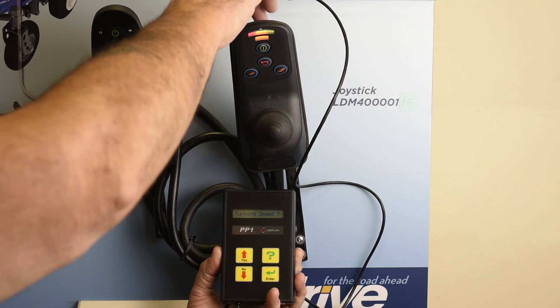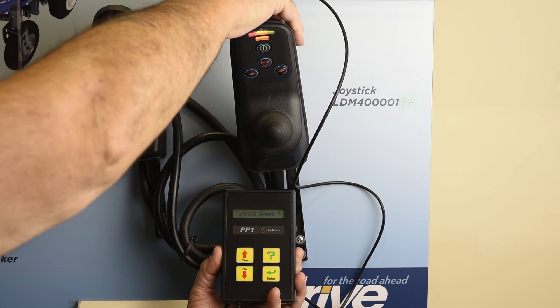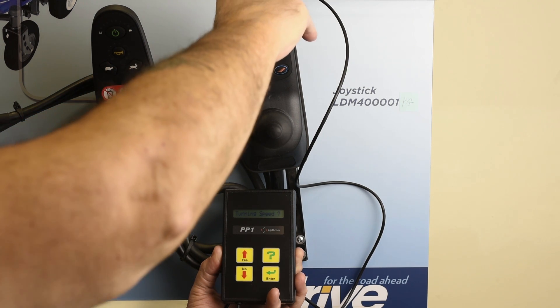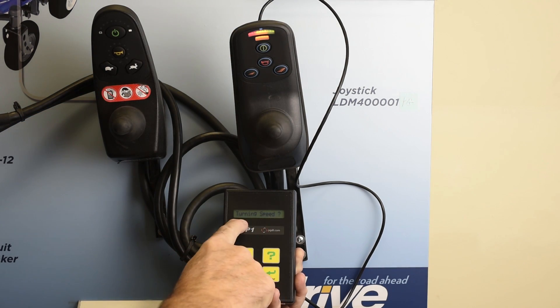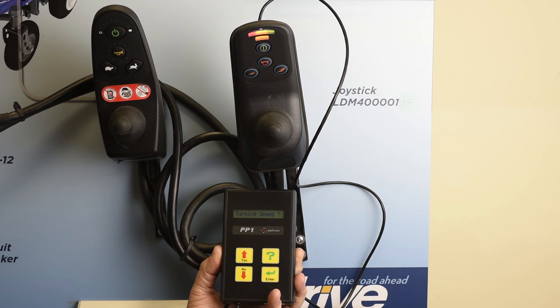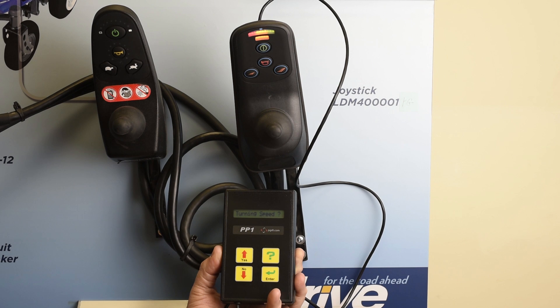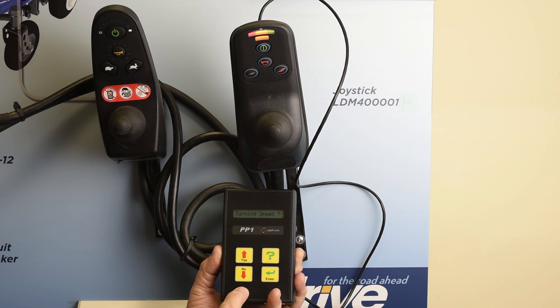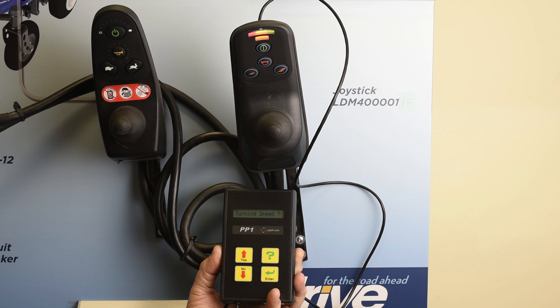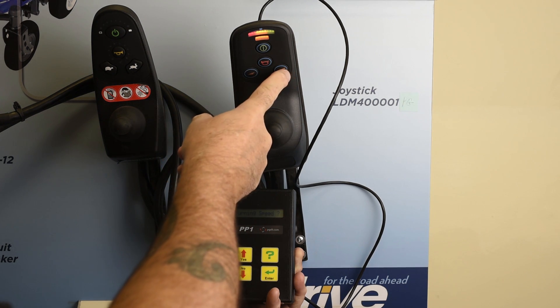On this configuration, we can plug the programmer into the charging port on the front of the joystick. When we turn on the joystick, the programmer will also turn on — you can see here that it's reading turning speed. Using the yes and no arrows, we can scroll through the functions until we arrive at the function we need to adjust. There's also an adjustment button on the joystick that can set the speed from slower to faster.